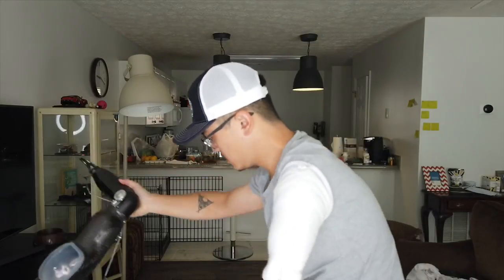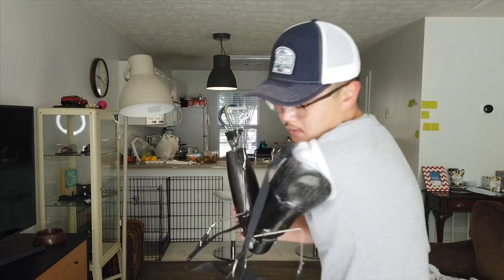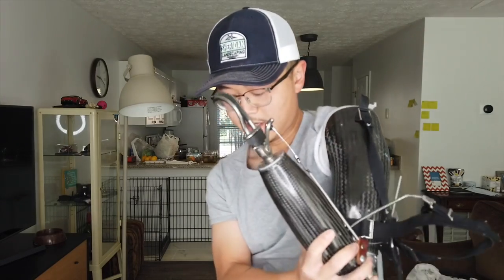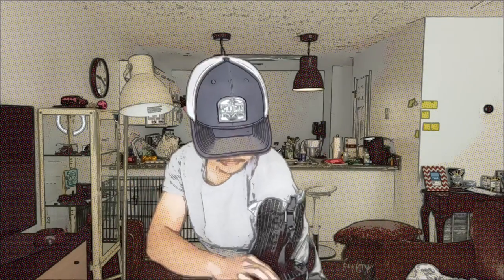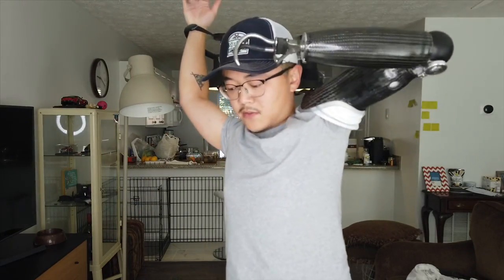Here's the prosthetics. I like to lay my prosthetics on a surface — on the table or on my bed. And I'll just snug it in like this. Since my residual limb is a lot smaller than the initial socket, I don't have to use the baggie I talked about to pull it through. I put this on. And then the harness — I like to raise my left arm as high as I can, and this one just drops in.